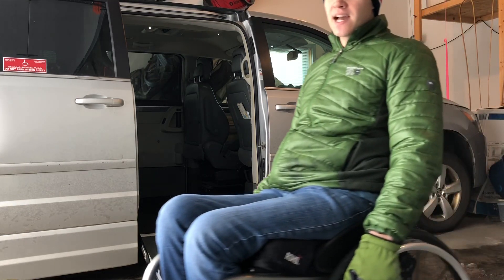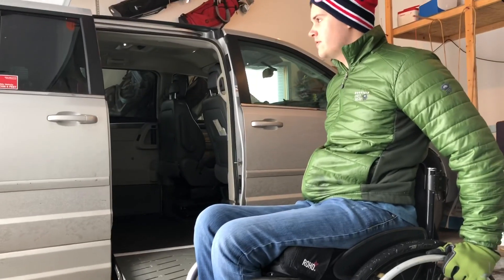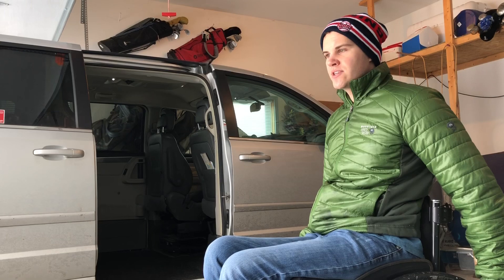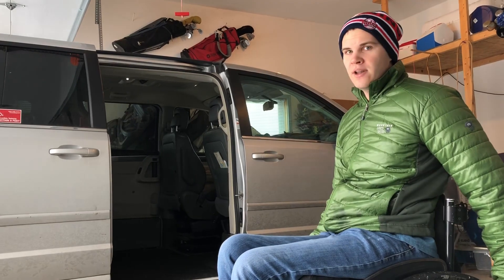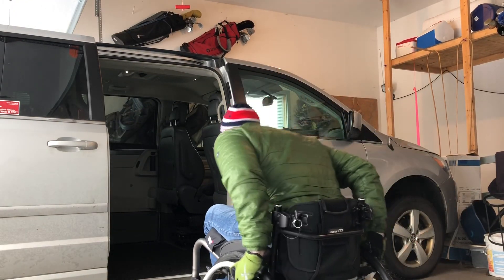To make it easy on myself, I use a van that has a ramp, so I'm able to just wheel right on in and I don't have to worry about doing transfers and disassembling my chair. I also have a sports chair that I put in my van, but it's very doable to have a vehicle without a ramp, disassemble your chair, and get into the vehicle.